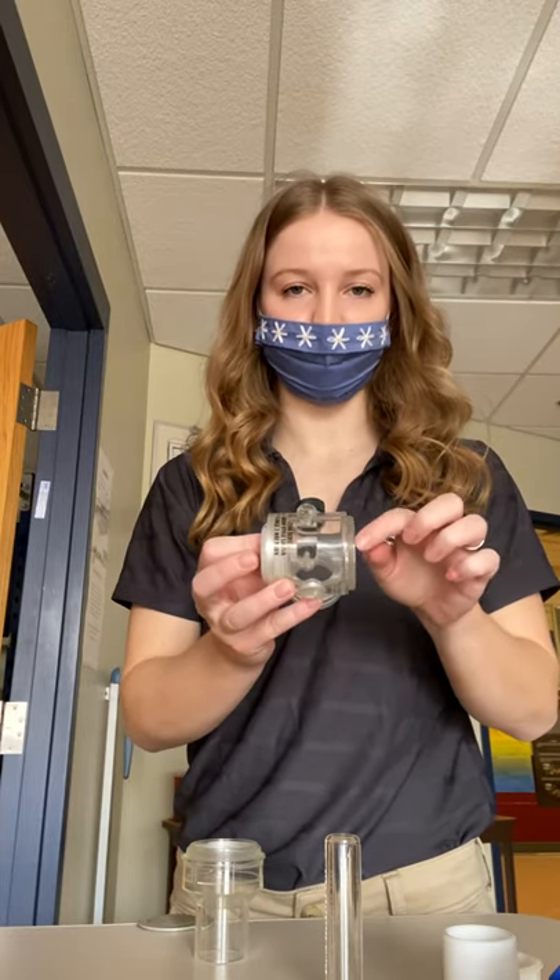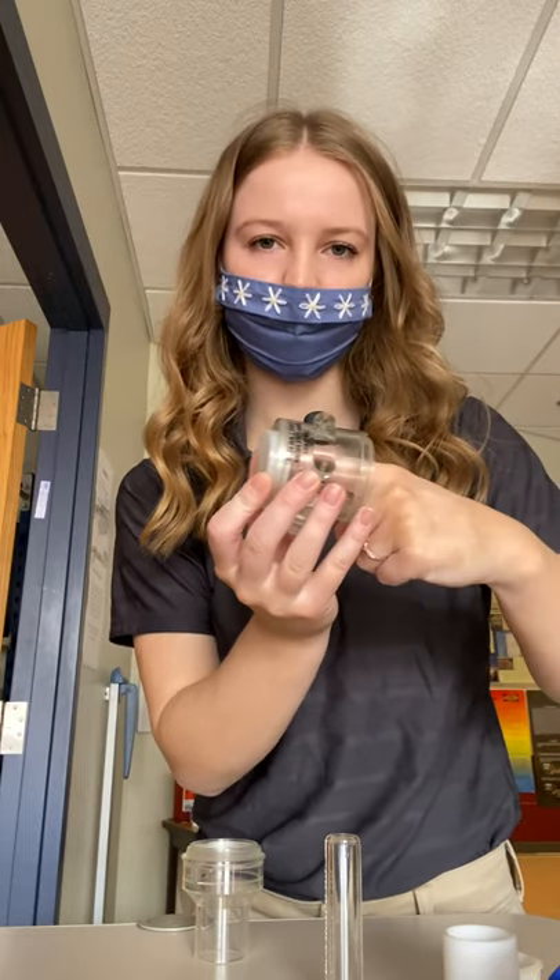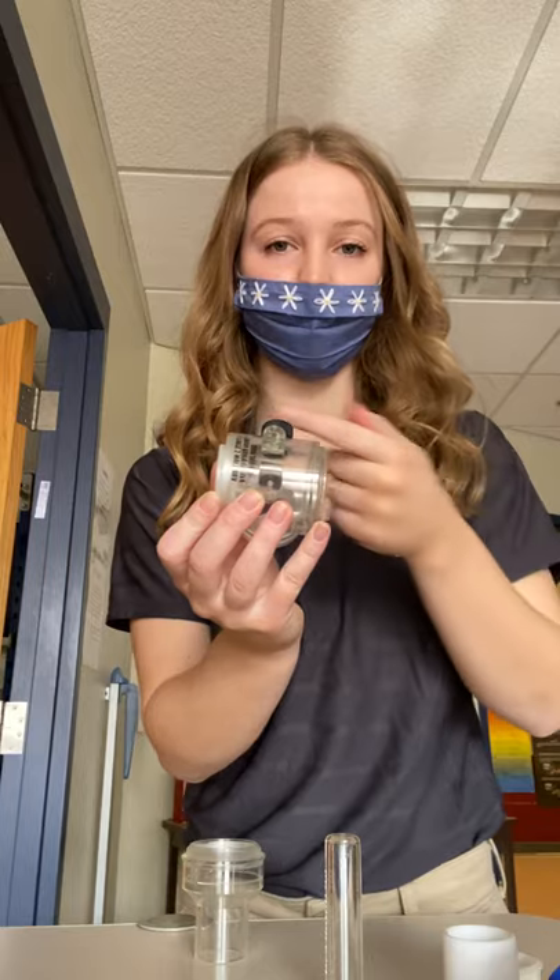On the other side, you want your valve to go the same way as this valve over here, so it'll look like this, still letting the air pass through this way.